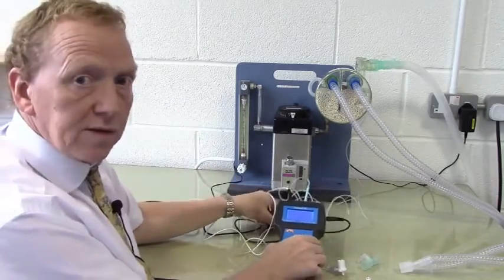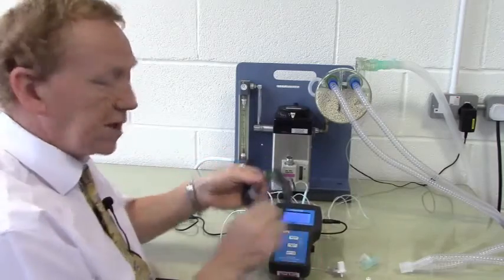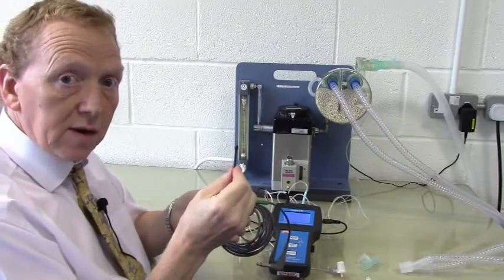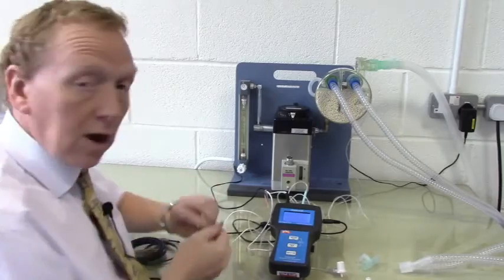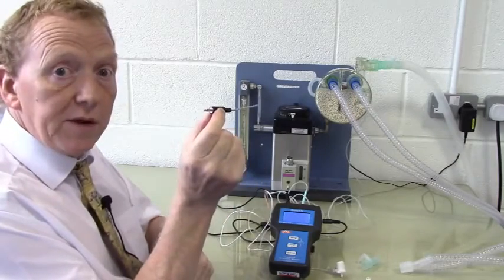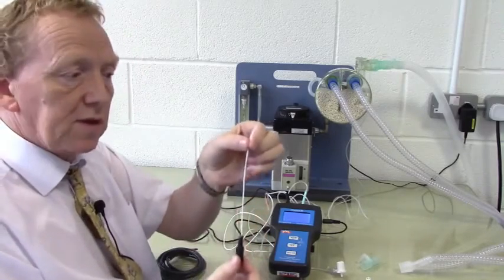And finally, the temperature. This unit may be configured to use the standard 400 series probes, which is the large 6.35mm connector with a standard sensor at this end, or to use our unique mini temp sensors, which have a 3.5mm connector and come in a rigid form like this, or in a flexible form like this.